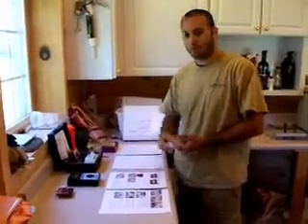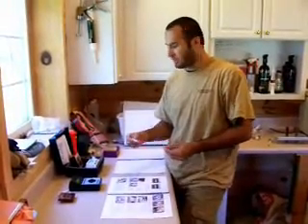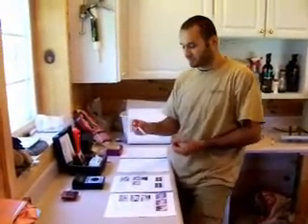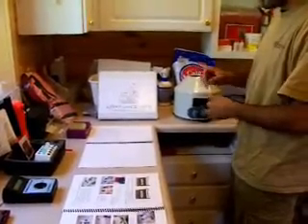While those are warming up, you can take a simple syringe and get your blood from your animal. You're going to take that blood and put it into a tube — either a serum separator tube, which works really great for this, or a regular blood collection tube. That goes inside a centrifuge and you're going to spin it for approximately ten minutes at 3,000 RPMs.